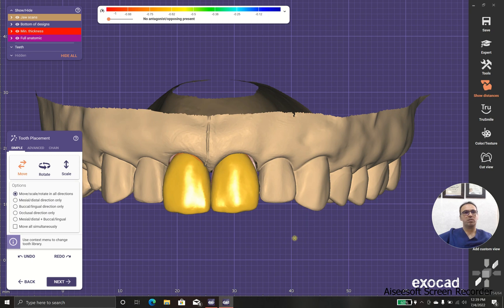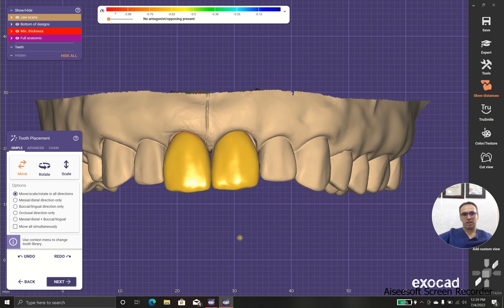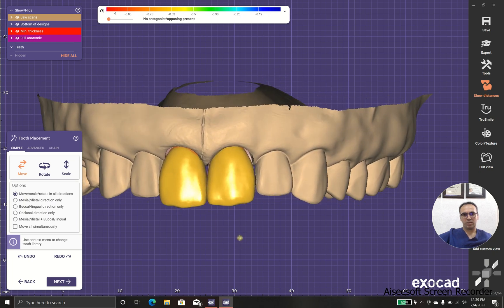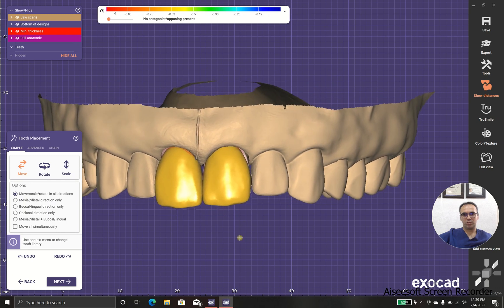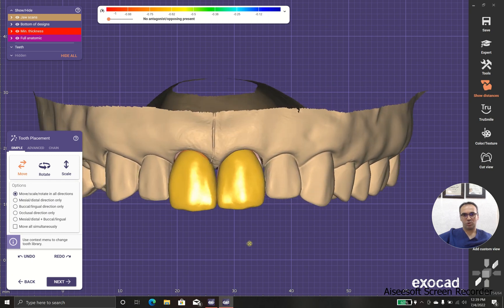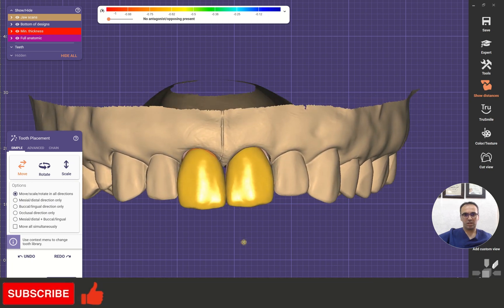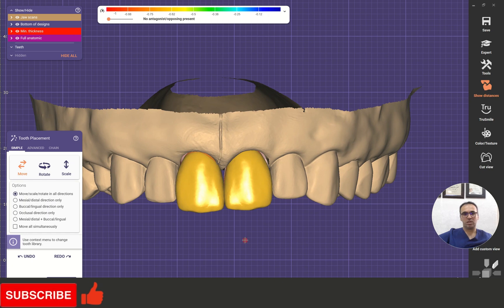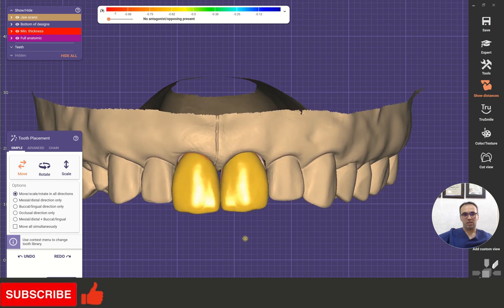In this situation, we have a problem with choosing the NHP, or natural head position. We need eyes or we need the midline of the head, midline of the face, to find the proper angulation. Because of some shortage in showing the face, I'm not going to do that here, but in a real case in my office, I will use that same approach.